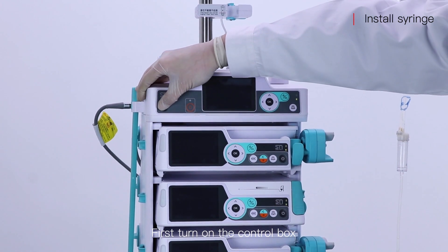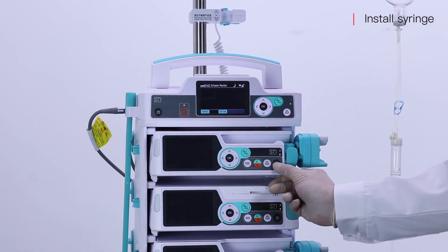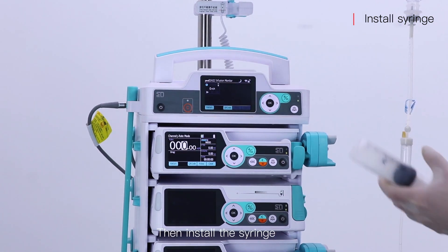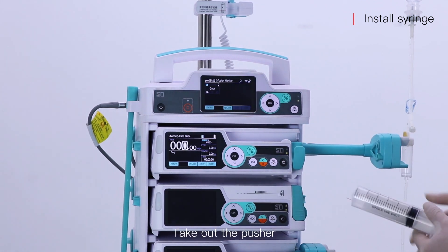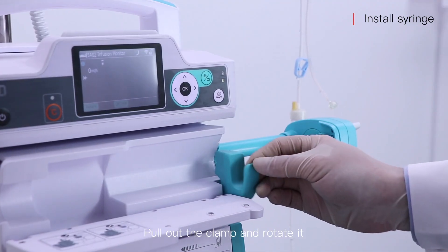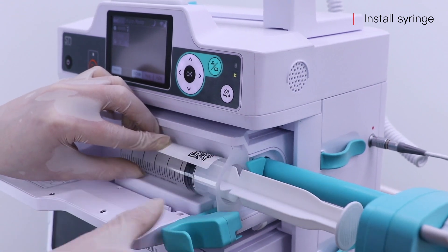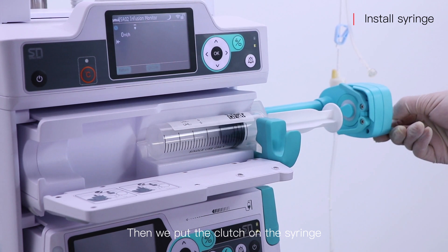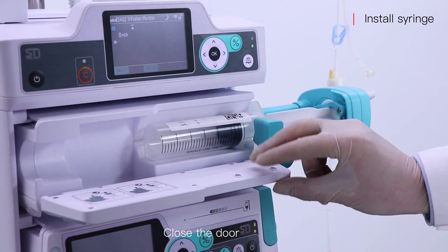First, turn on the control box. Turn on the pump. Then install the syringe: take out the pusher, open the door, pull out the clamp and rotate it, put the syringe into the slot, then put the clutch on the syringe. Close the door.